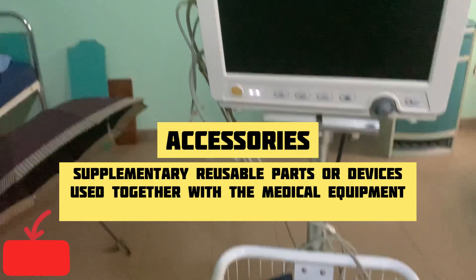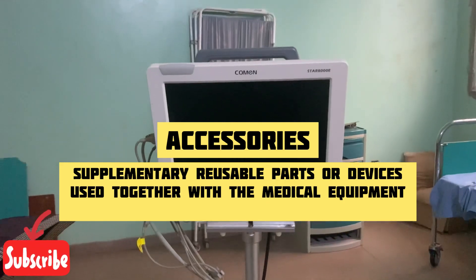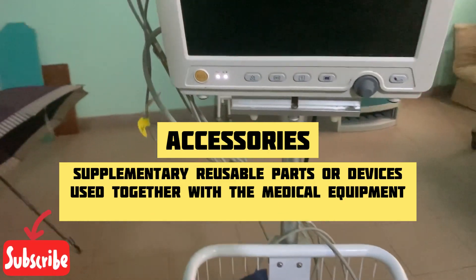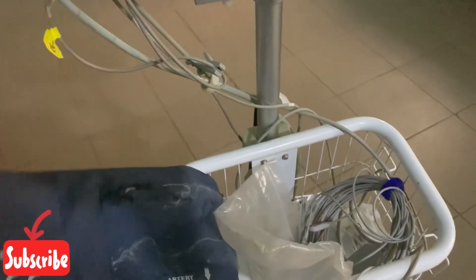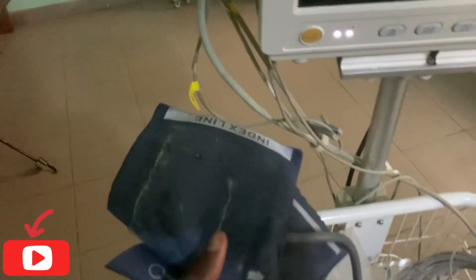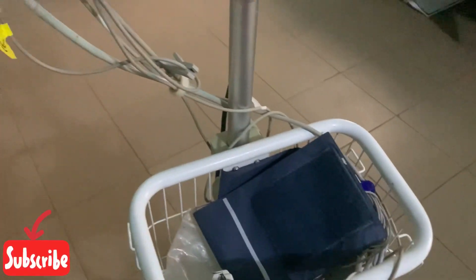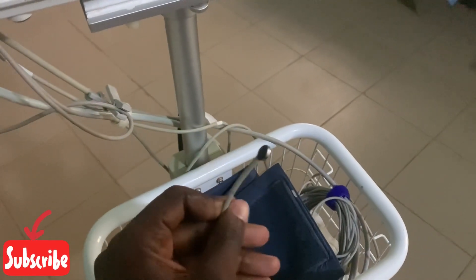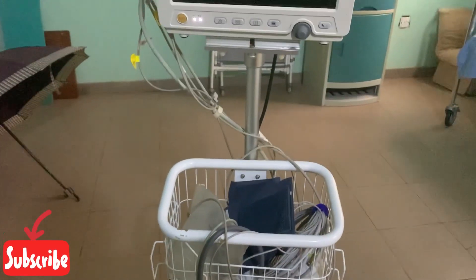Now let's talk about accessories. Accessories are items used on the equipment which can still be reused even after being used on any patient. For example, we have the ECG lead, the NIBP cuff used to measure blood pressure, the SpO2 probe used for measuring the oxygen saturation level of blood, and the temperature probe used to measure the patient's temperature.